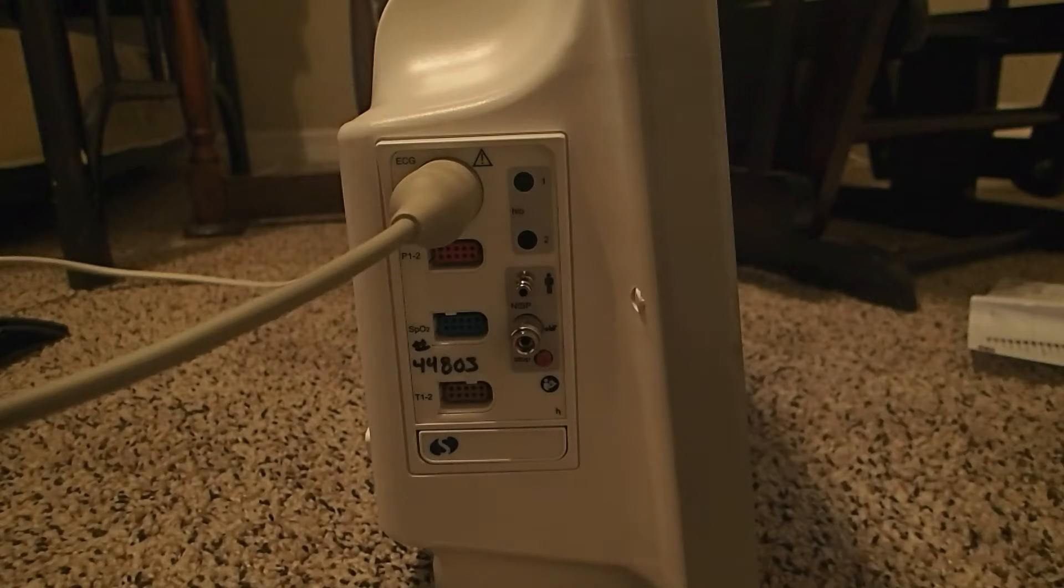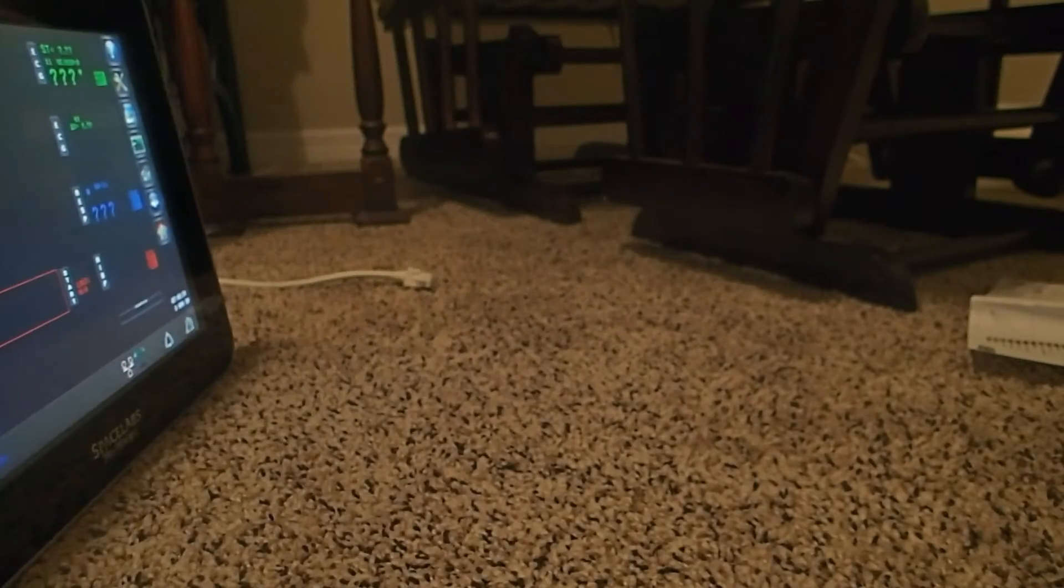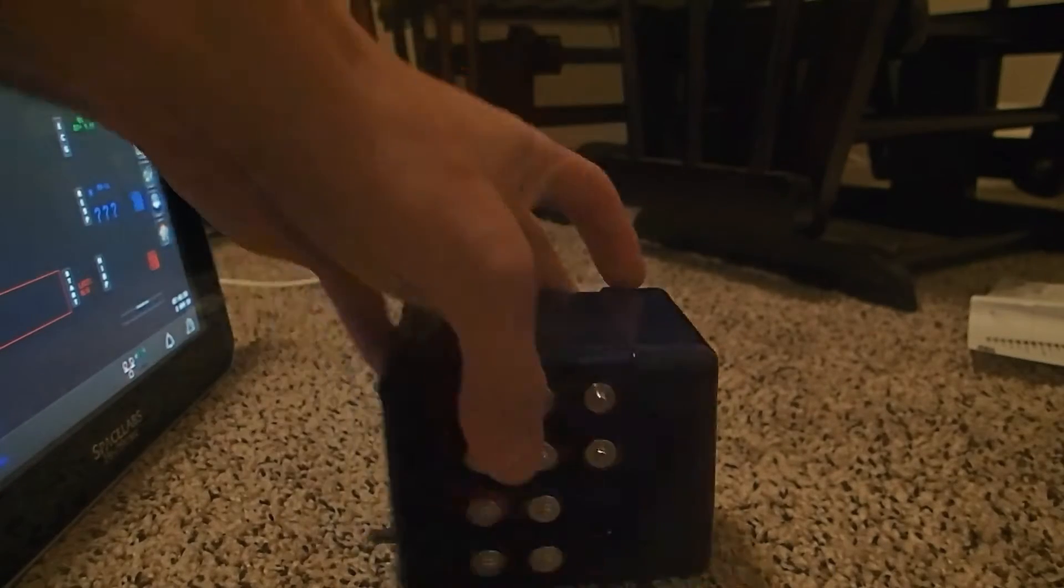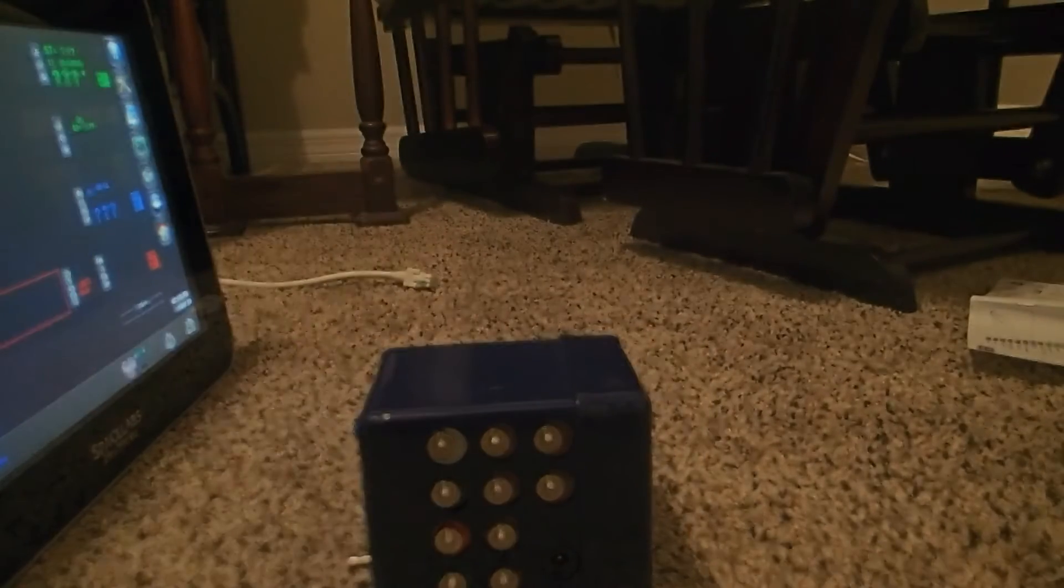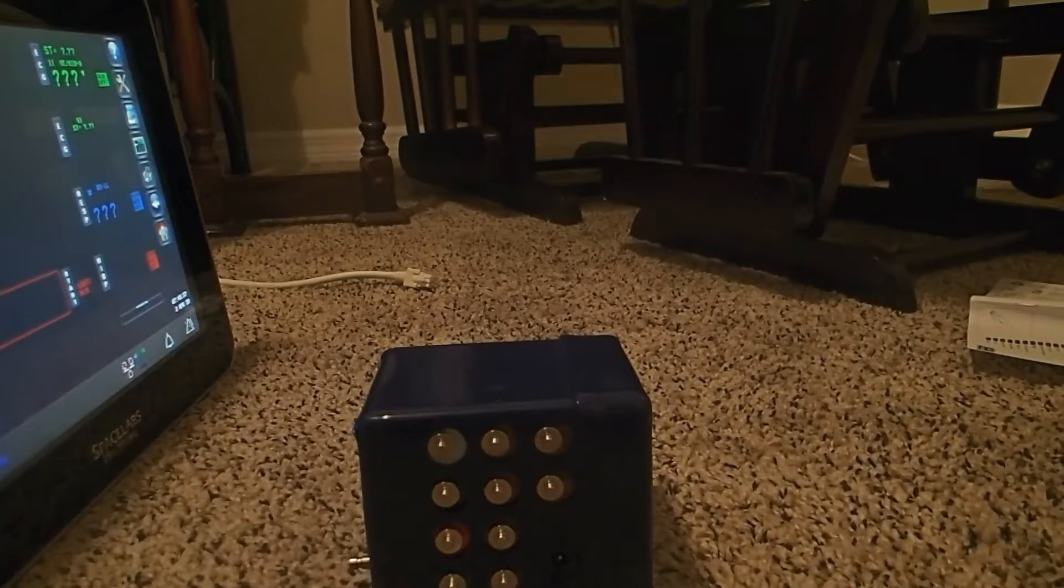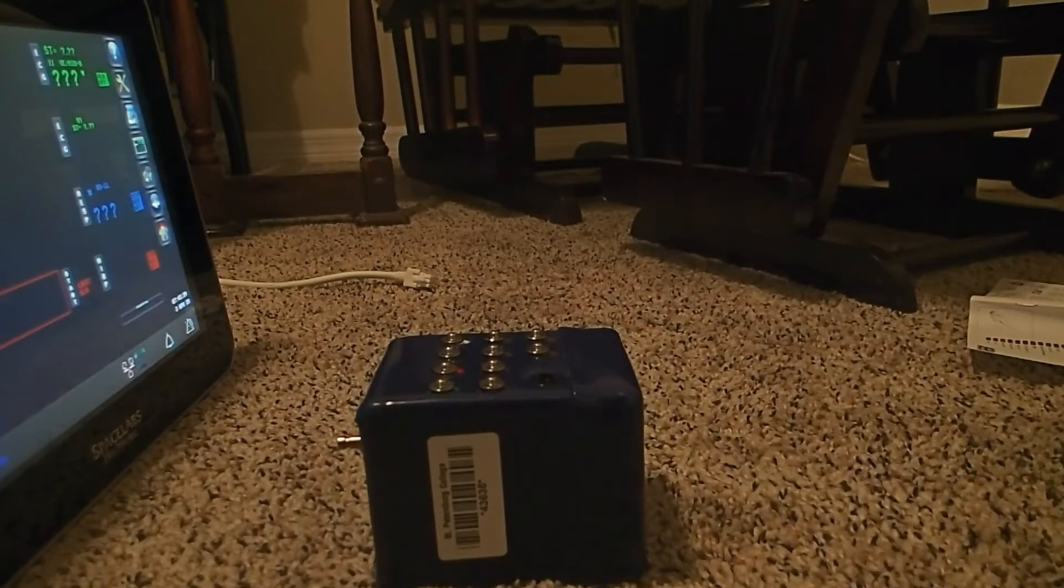From there, we need to take our leads and plug those in to our SimCube 5.